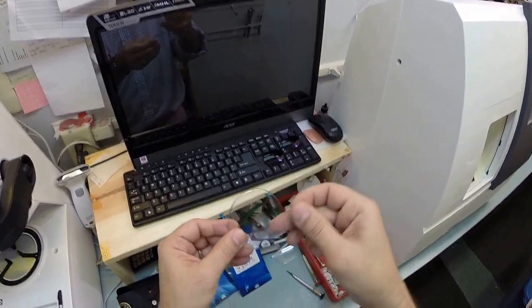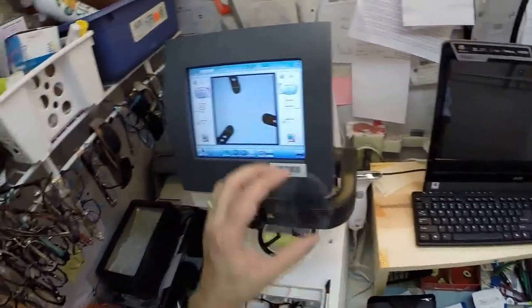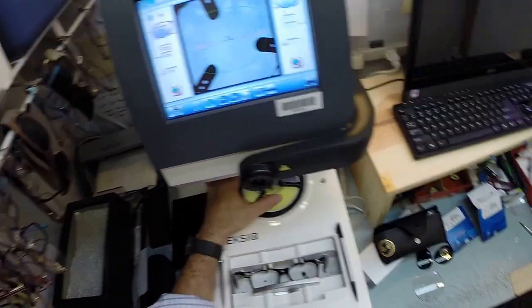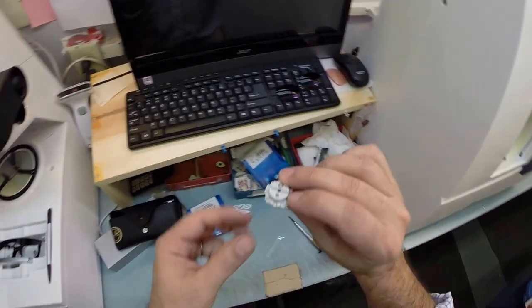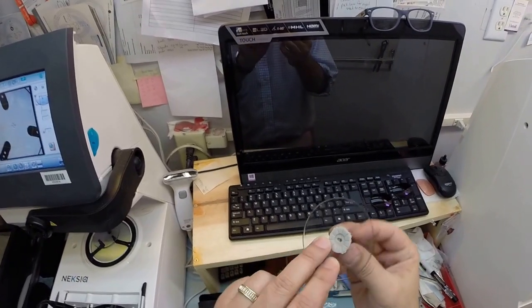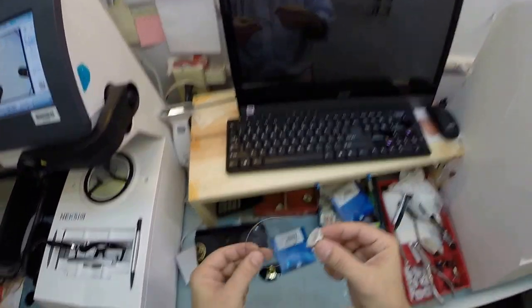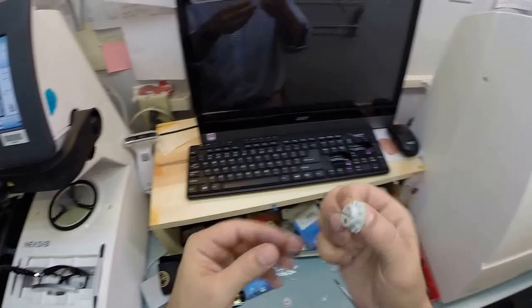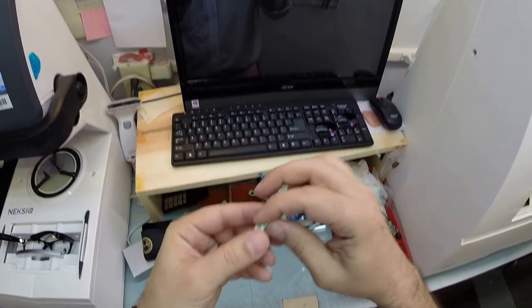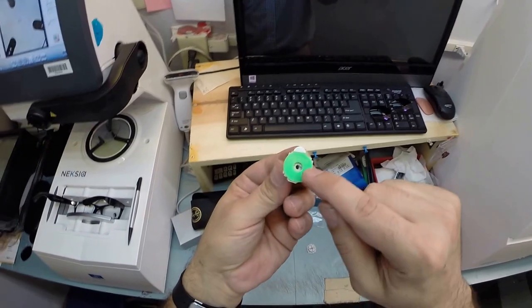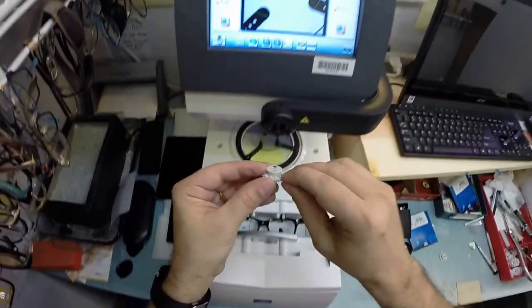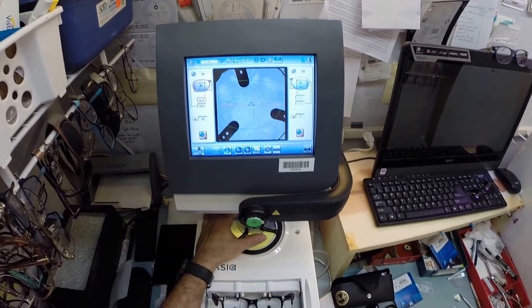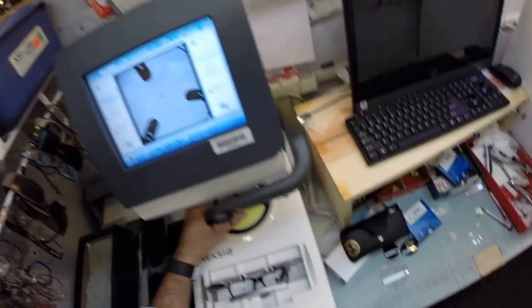I'm going to do the same thing now for the other lens. Take it out of the packet and pull that off. Because these are not prescription, I'm just going to place them right onto the platform. This is a block, or as I like to call it Jenny from the block. I need to attach this to your lens before it is cut. That's what's going to hold it in place in the edger while it is cutting. So I need a double-sided adhesive sticker. The little silver button in the back is a magnet. I'm going to pull the paper away to make the second side sticky.